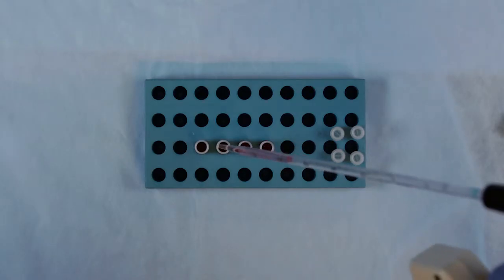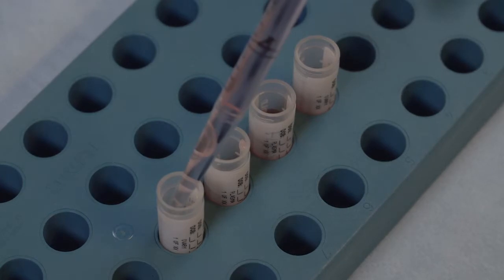If you are able to, set the vials up the day before with your cryoprotectant and keep the vials in the refrigerator until the day of the procedure.